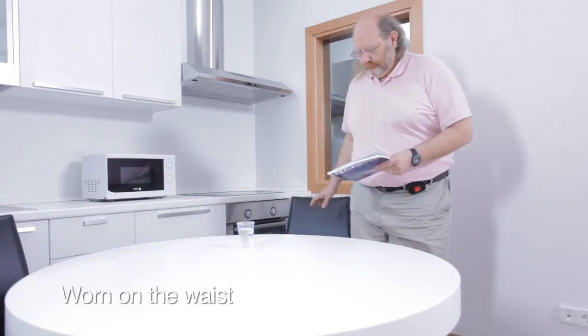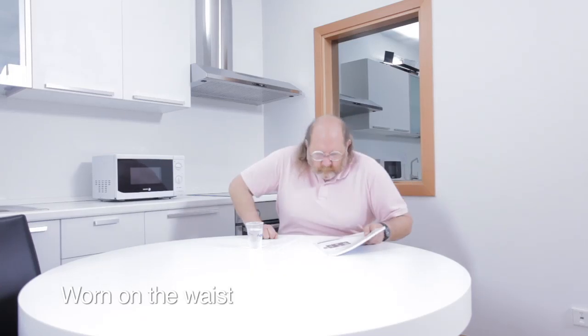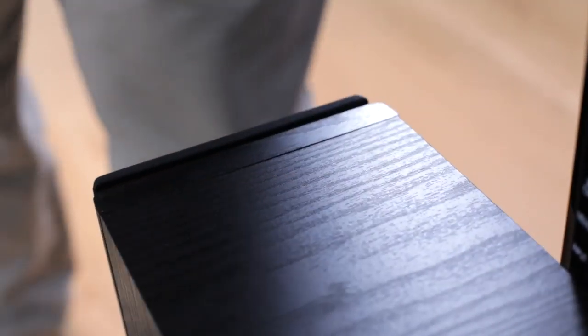The device is worn by the user at waist level located on the belt, skirt or trousers throughout the day. It has to be firmly worn and move in solidarity with the user's trunk movements.